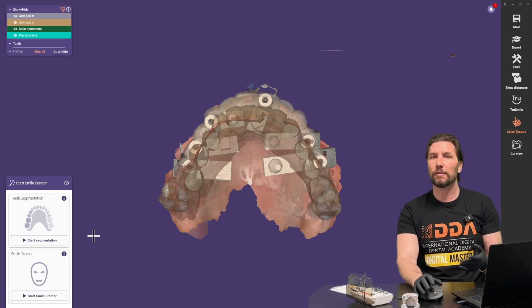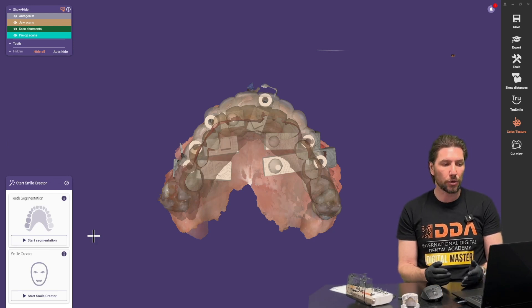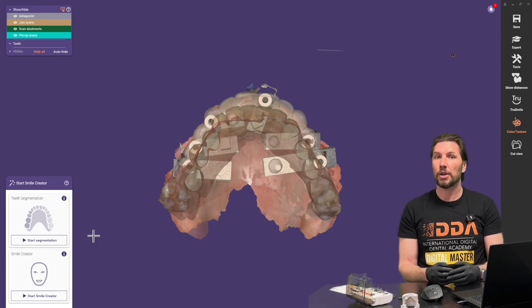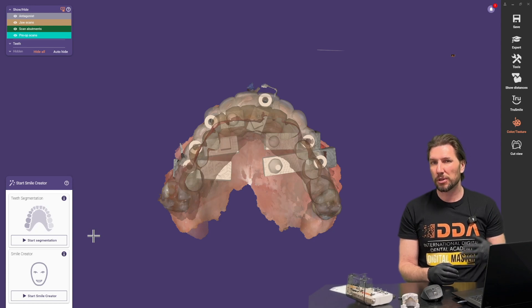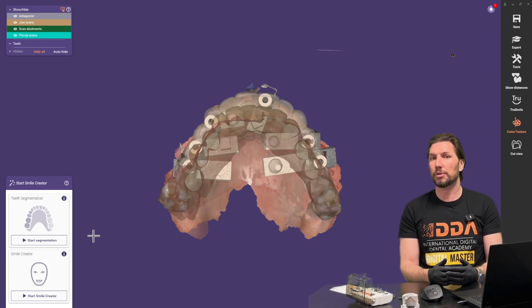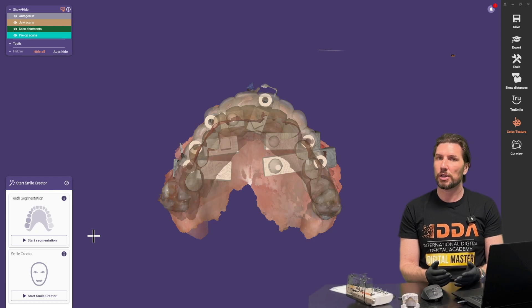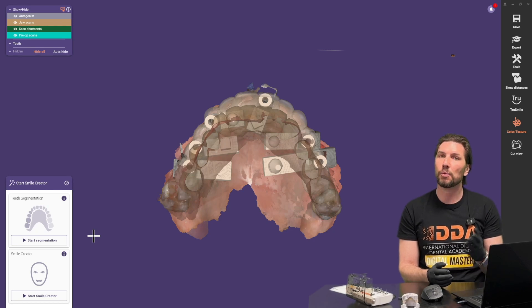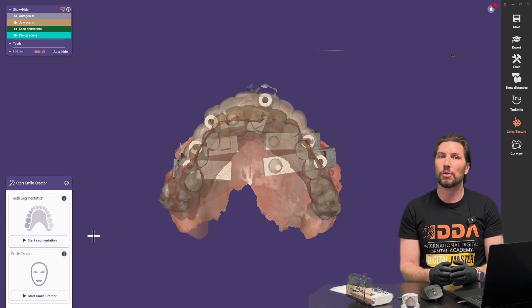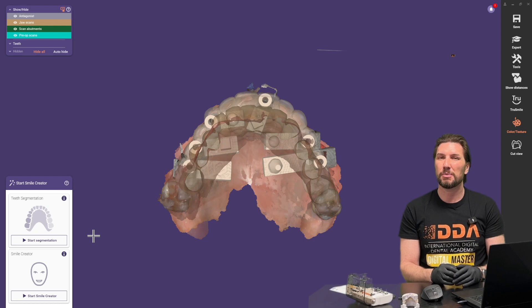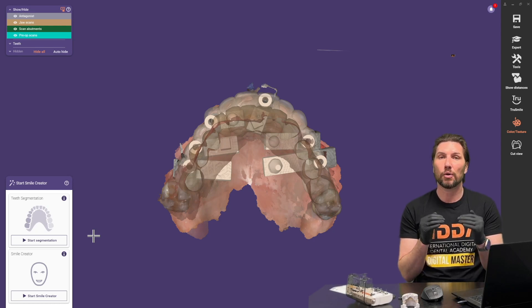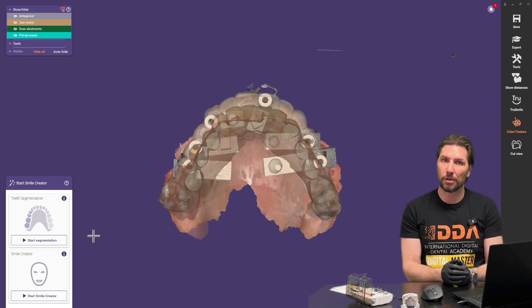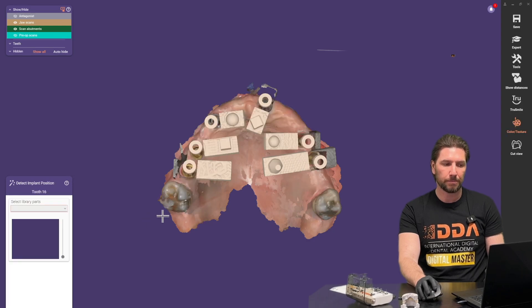Now if you were following a more detailed workflow we could follow along and go through Smile Creator but there is a Smile Creator tutorial that is separate to this and I would suggest watching that if you want to involve bringing in 3D scans or facial pictures to be able to plan their midline or the occlusal level perfectly. But for this we're just going to click skip.